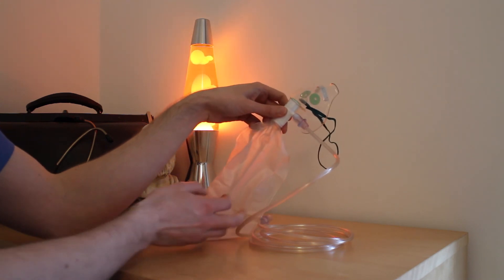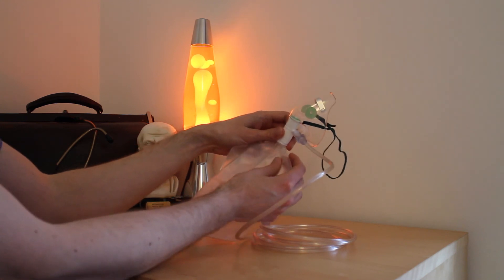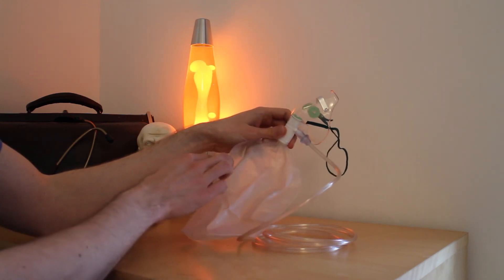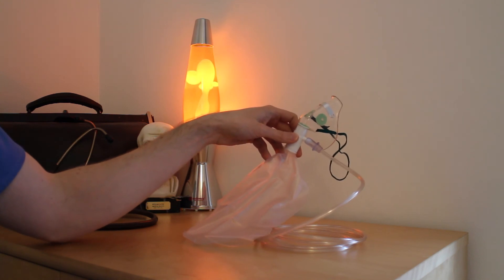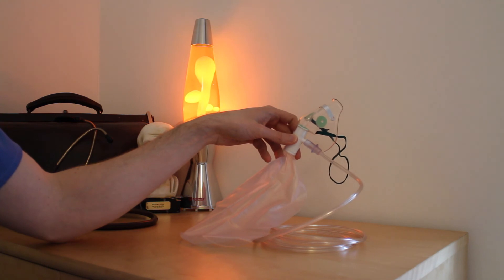I have seen this mask used in emergency situations around the hospital and pre-hospitally. This mask is used to deliver oxygen to those patients who may be compromised, particularly if they are hypoxic.